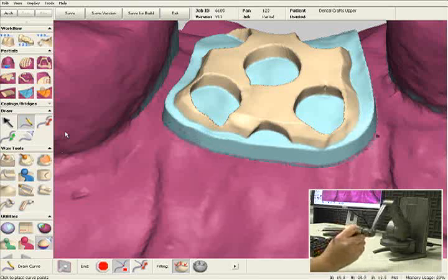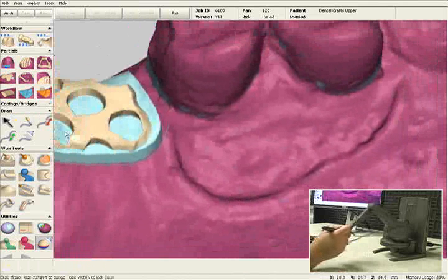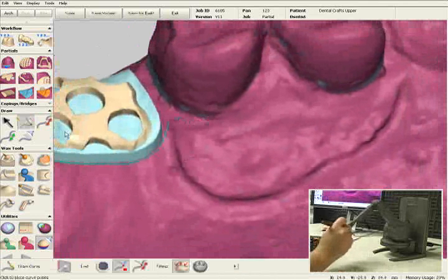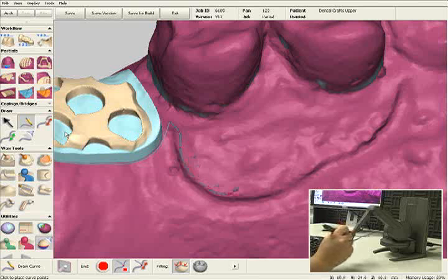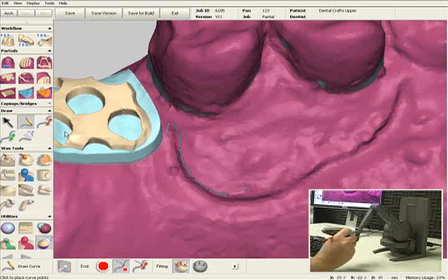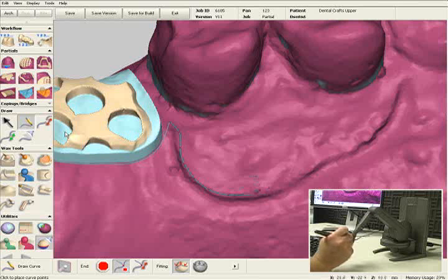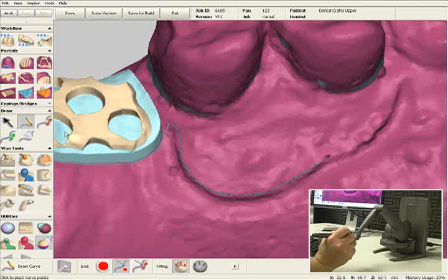With our software, you can actually work in a couple of different ways. You can work on top of the model, which is what I'm doing right now as I'm plotting points right on the edge of the bead line. Or I can actually pop through to the inside of the model and feel the edge of this bead line from the inside — that very sharp corner right here — and follow that all the way around to the end of the bead line.